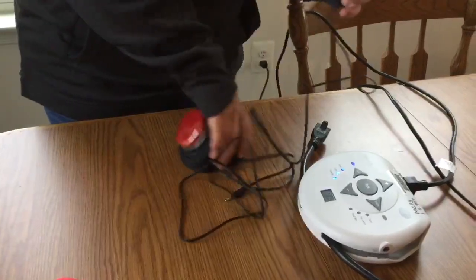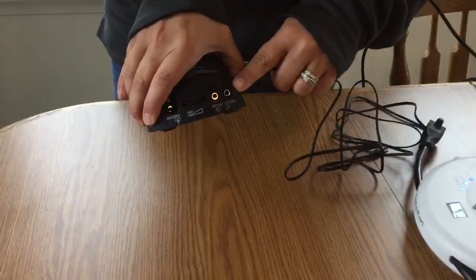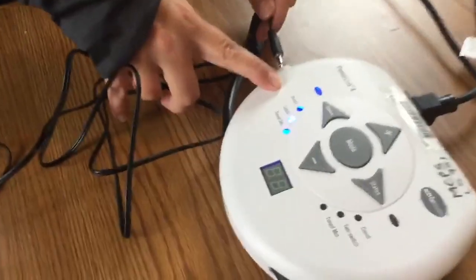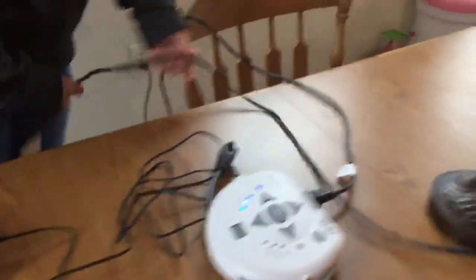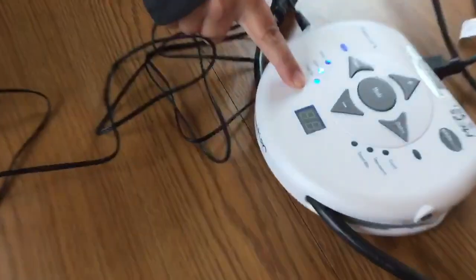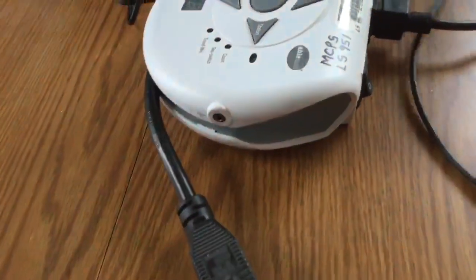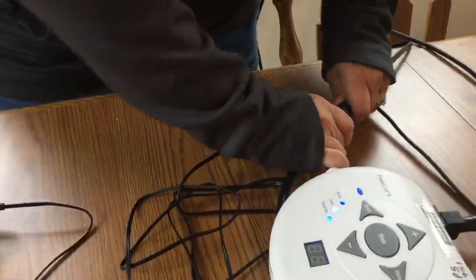Now that the step-by-step is programmed, you're going to take your cord and plug it into the port that says toy and appliance. The next step, you're going to take the other end of the cord and plug it into the side of the power link. Make sure your power link is plugged into the wall — you'll know by seeing the blue light lit up. The power switch is right here on the back.